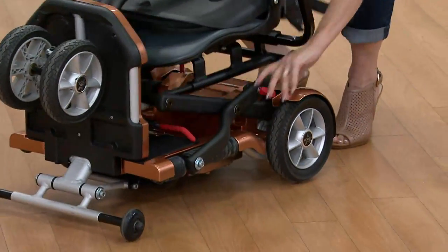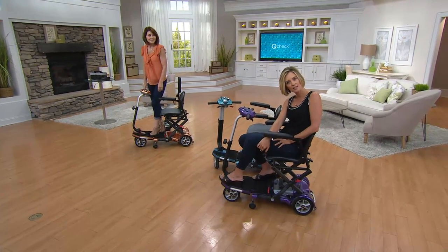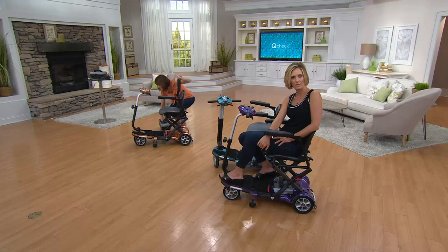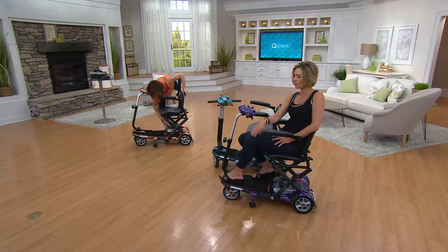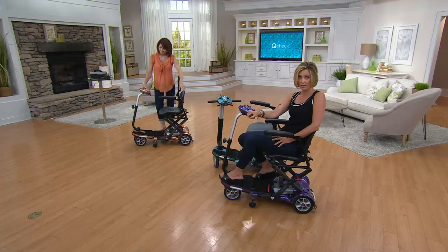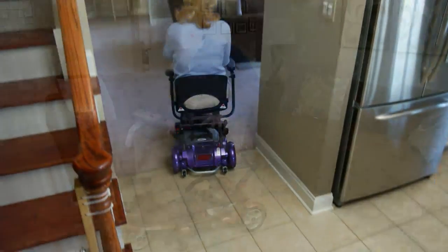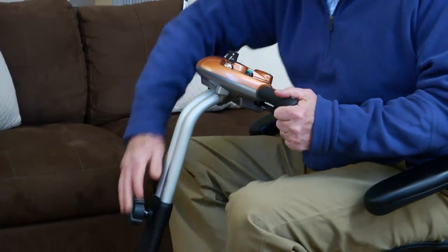Hot pick is a very important product — something that gets a little extra attention during the day, and usually there's something special about it, like special pricing. Today at six easy payments while supplies last, it's limited time and limited availability. Violet and copper are exclusive to us. Blue is very popular but getting limited. Always great to see you, Denise. Thank you, Kirsten.